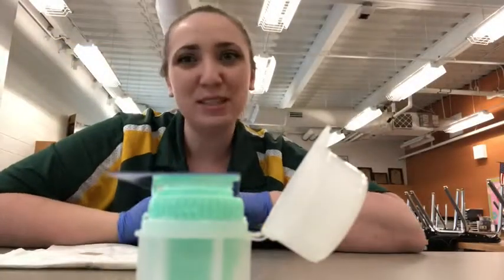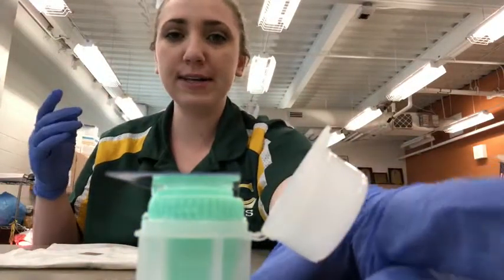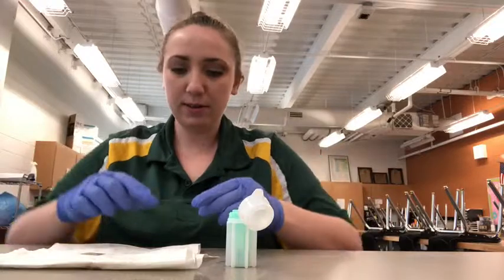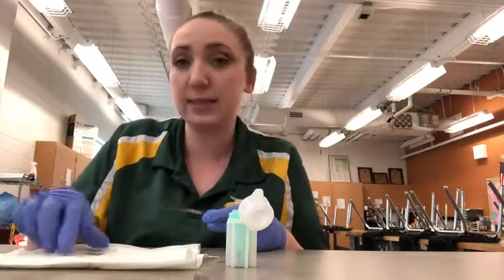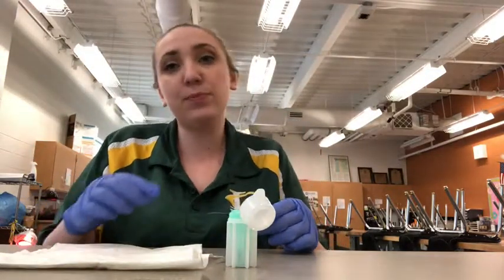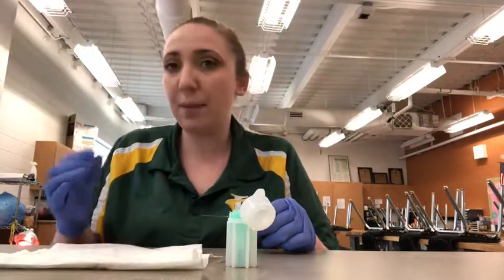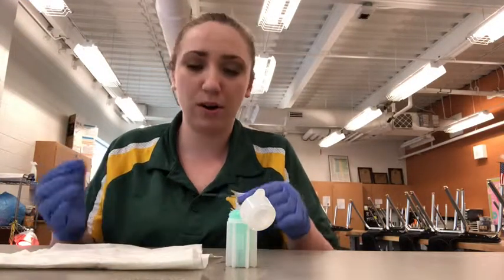All right, so once your 10 minutes has expired, you're ready to prepare your slide. So what you're going to do is carefully take your sample, flip it over, leaving a little bit of the solution with whatever debris or eggs. This is not the greatest example. You probably want to use a looser type of fecal material for this type of test. Rabbit fecal material, fecal pellets, tend to be a little bit hard.